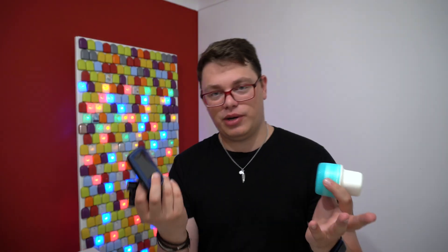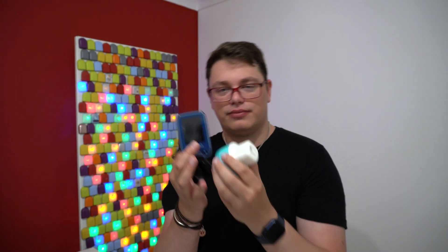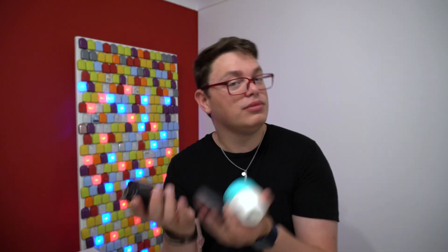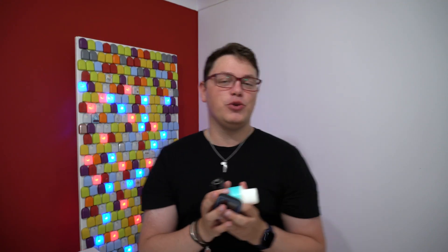This is my old 640G that I used to use back in the day — my first insulin pump — my old Libre 2 which was my second CGM after Libre 1, and the Simplera that I recently reviewed. In case you were wondering what these three products look like when held together — this is content! Let me know what you think about this news in the comments. Are you excited? Did you see it coming? If you have any questions, let me know and I will try my best to answer them. Thank you so much, be kind to one another, and goodbye!